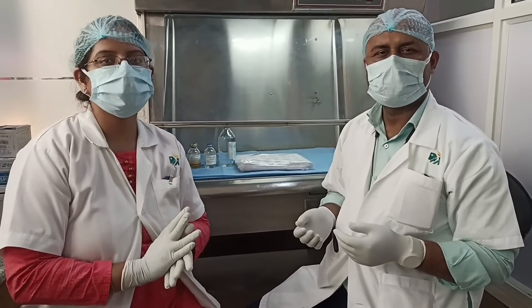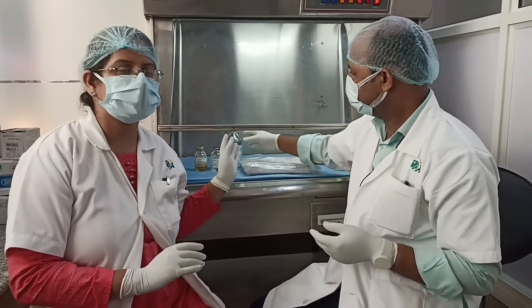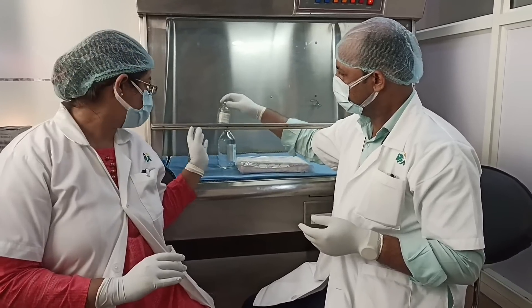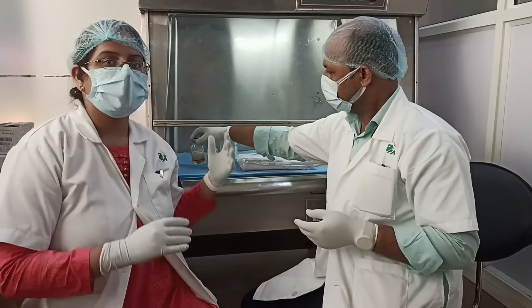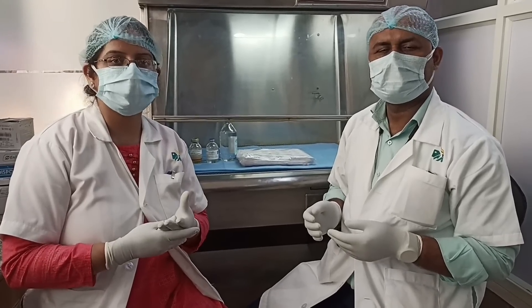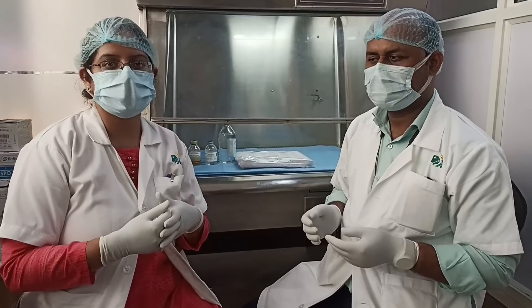To prepare 100ml of cryoprotective solution, we will be needing the following items: a 500ml glass bottle of normal saline, DMSO 100% concentration at 99.9% clinical grade, and 20% human albumin which usually comes in a 100ml bottle. Apart from these, we will be needing ice packs or an ice bed, consumables such as an IV transfusion set, 50cc and 20cc syringes, 16 gauge needles, and some sterile as well as unsterile drapes.